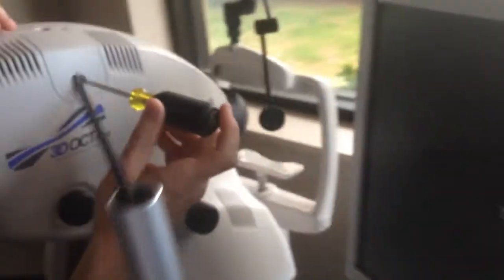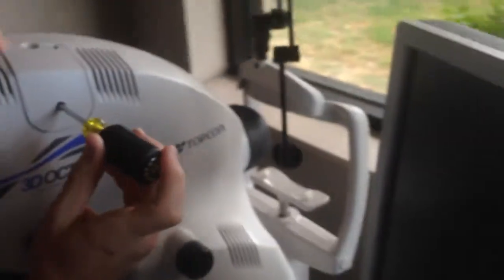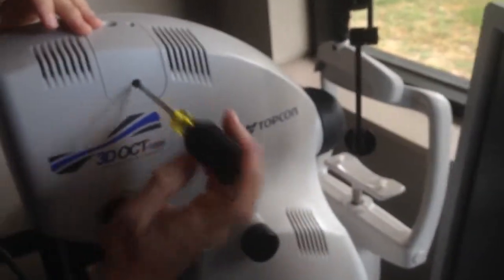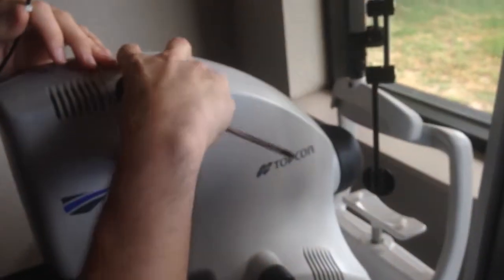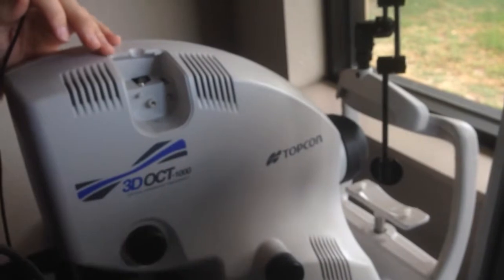Okay. Now, I'm going to remove the plate on this side, the OCT. One screw here. Back it all the way out. This plate comes off.